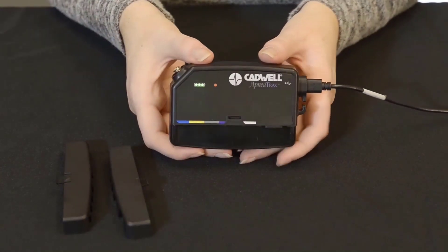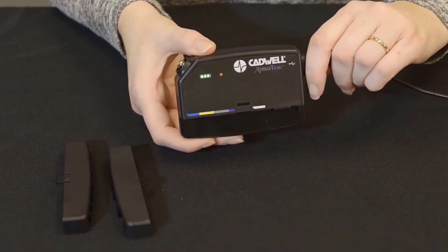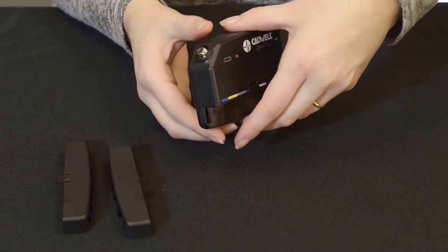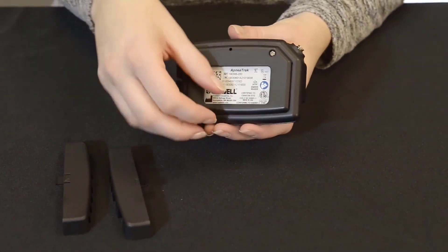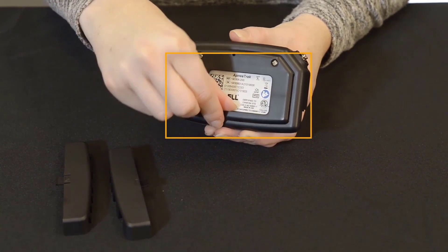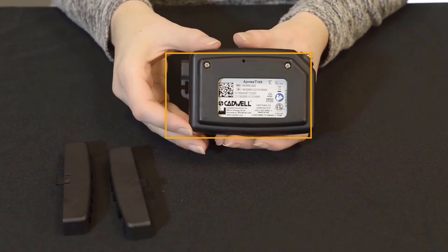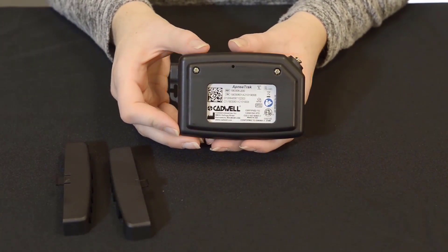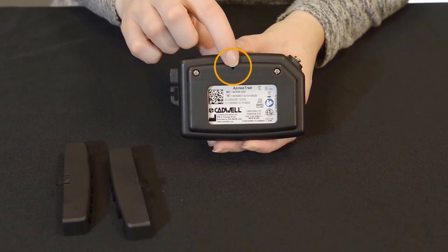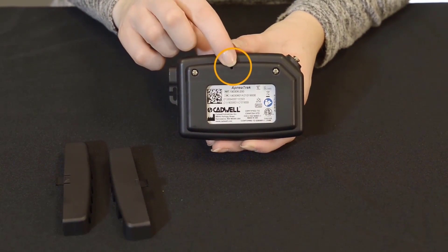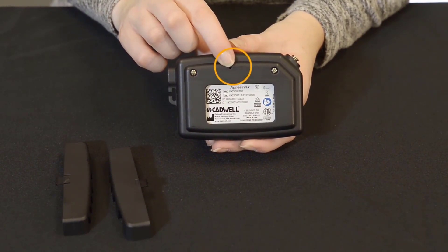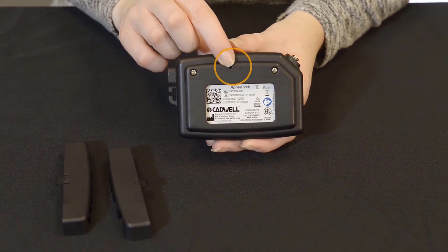On the back of the device, you will find a belt clip for mounting the device to a respiratory effort belt. Both covers and the belt clip can be replaced if lost or broken. At the top of the belt clip is a small hole. For troubleshooting purposes, a paper clip can be used to reset the device.